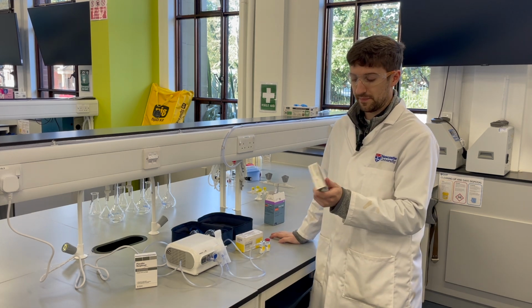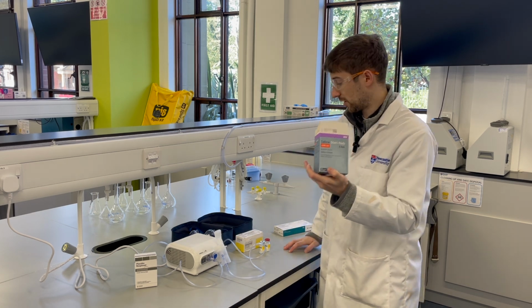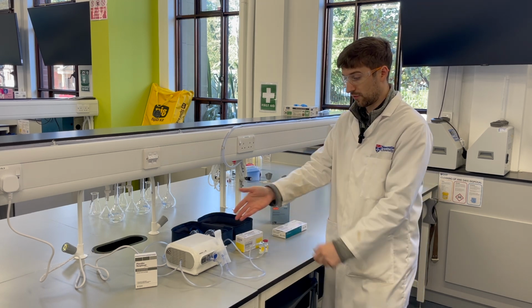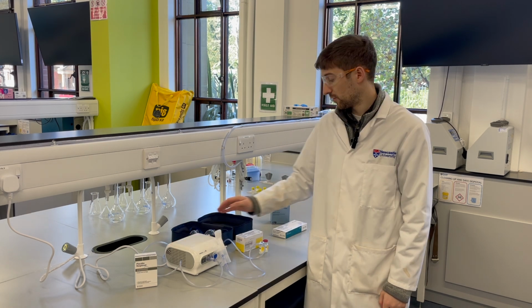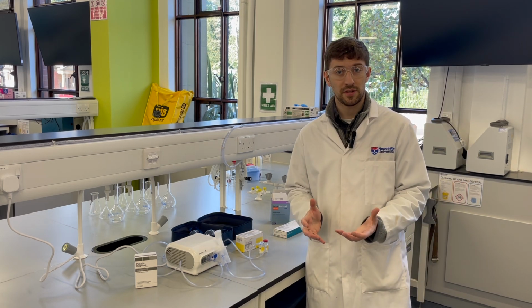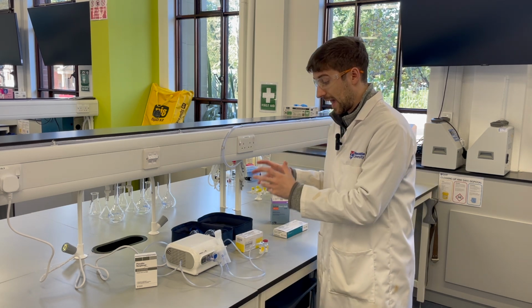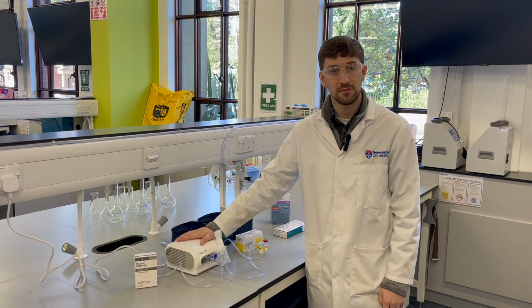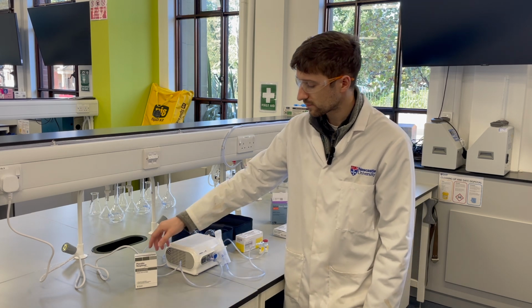I also have some Ventolin here too, and some saline steri-nebules, which will help you create your colamycin solution and formulate the nebulized solution for delivery for salbutamol if you wish. And of course, as always, there are some reflection points in the lab manual that I want you to think about with respect to the efficacy, of how efficiently this delivery system can deliver drugs to the site of action in the lung.